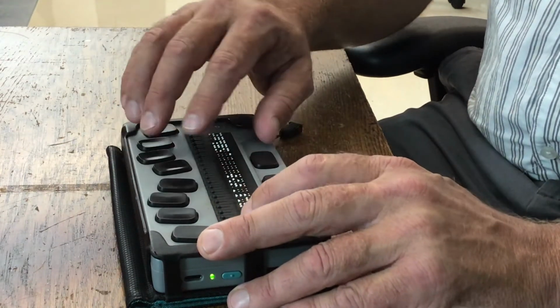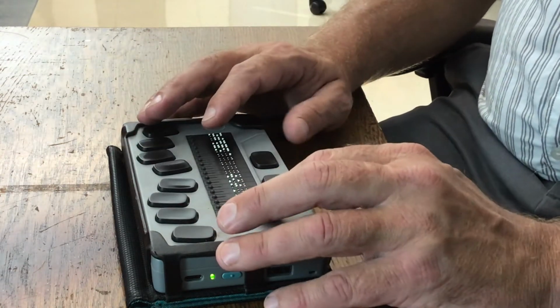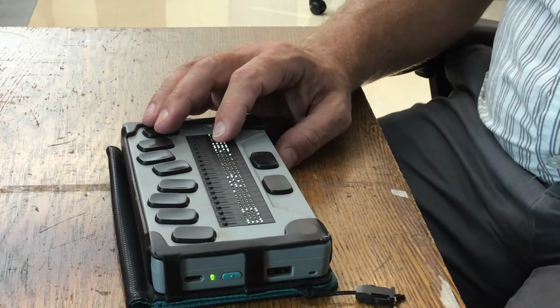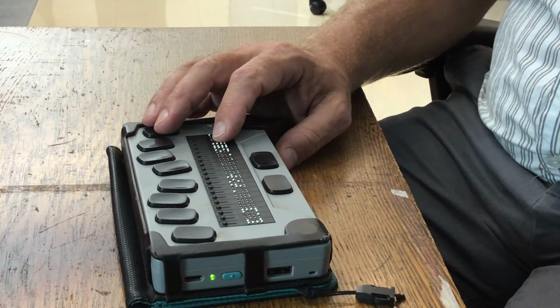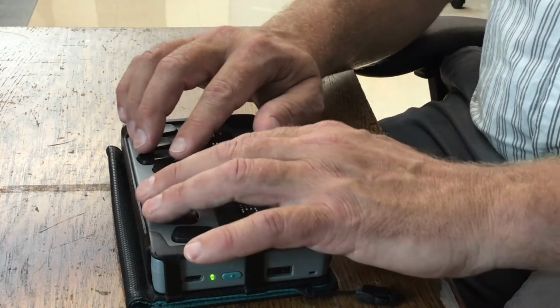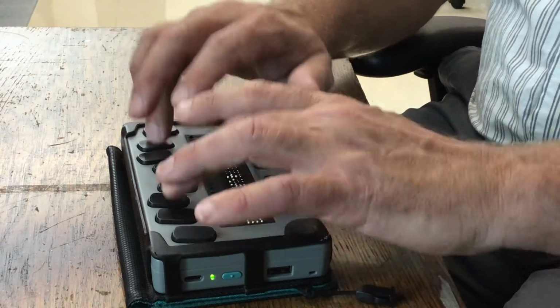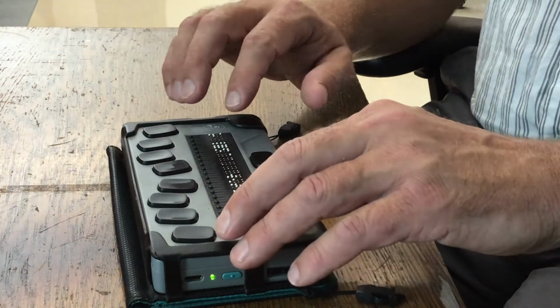So back out to the main menu with the round button, scroll down past File Manager, you have Calculator. So there is a built-in calculator. You press enter on that. The calculator supports computer braille, and basically all that means is you're going to write your numbers in Nemeth code. Don't use the number sign. Okay, so if I want to do 5 plus 5, I'll do 2, 6 for 5, 3, 4, 6 for plus, 2, 6 for 5, press enter, and I have 10 on the braille display.